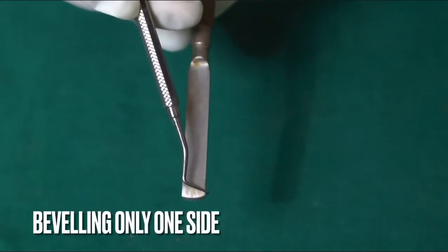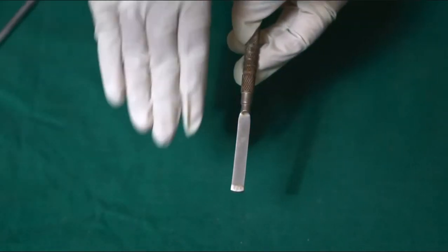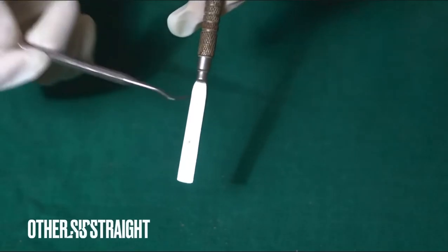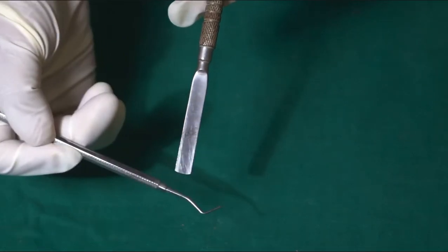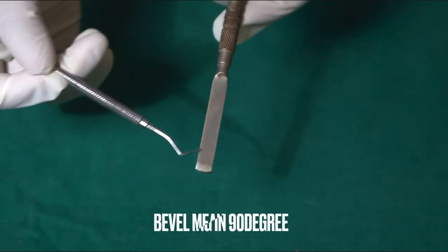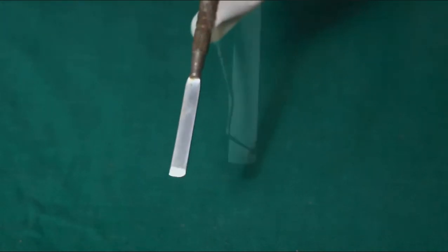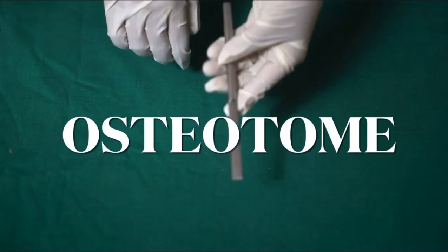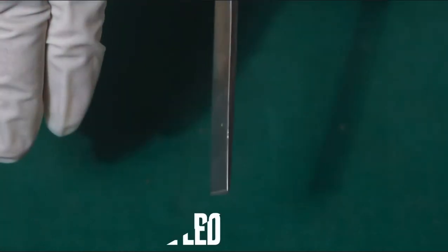Starting with the chisel: in a chisel, only one side is beveled. As you can see in the video, and as I'm demonstrating with my hand, one side will be slanted and the other side is always straight. Because only one side is beveled, the chisel is known as mono-beveled.